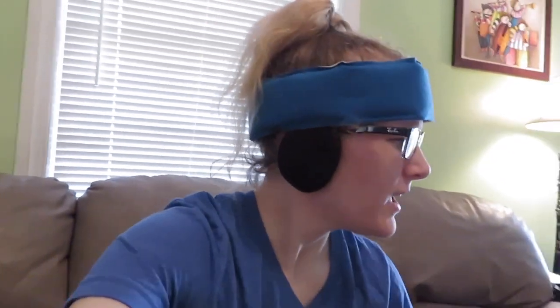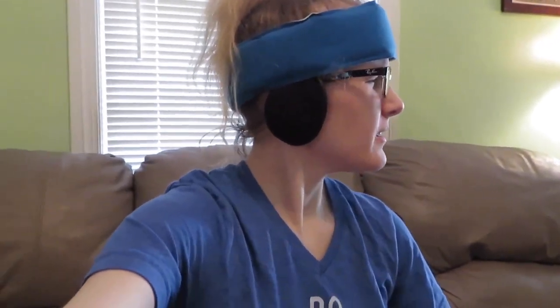It's cool because you get a free carrying pouch with this product when you purchase it online. So I got a free carrying pouch. It is a Karman chair — I can't tell you the model number right now, I don't remember it — but we'll do the unboxing and then we'll talk about it a little bit.